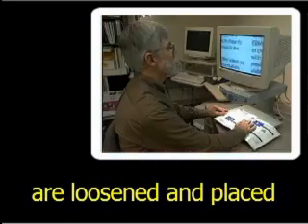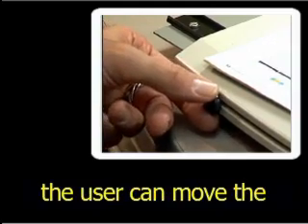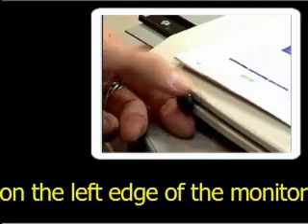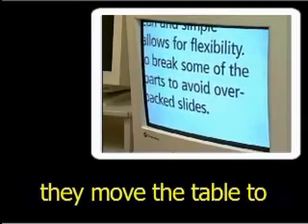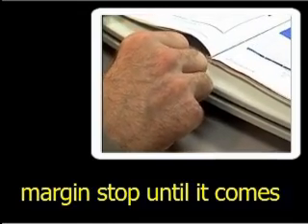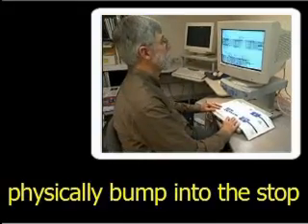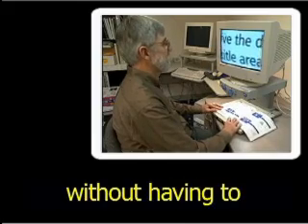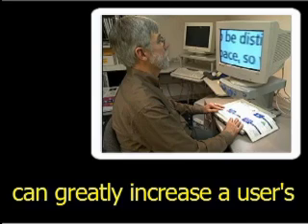To begin, the margin stops are loosened and placed all the way to the outer edges of the table. After adjusting the magnification to the desired size, the user moves the XY table to a position where the beginning of a column is displayed on the left edge of the monitor, and adjusts the left margin stop to the desired position. Next, they move the table to where the end of the column is displayed on the right edge of the monitor and adjust the right margin stop accordingly. The reader can now read, and the table will physically bump into the stop at the end of the column. They can then move the table quickly back to the beginning of the line without having to visually locate it. Proper use of the friction break and the margin stops can greatly increase a user's reading efficiency.